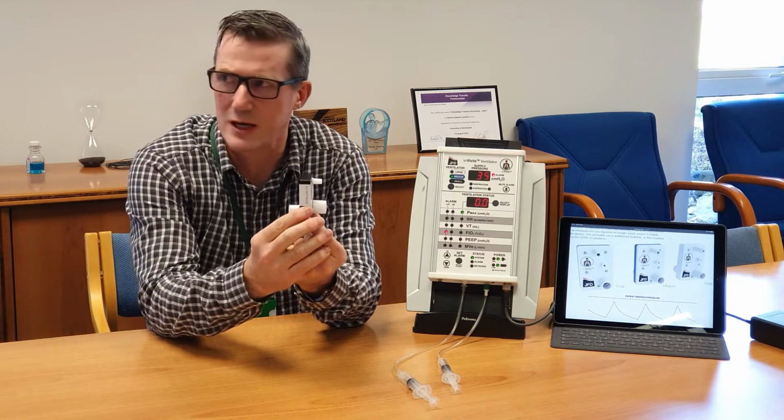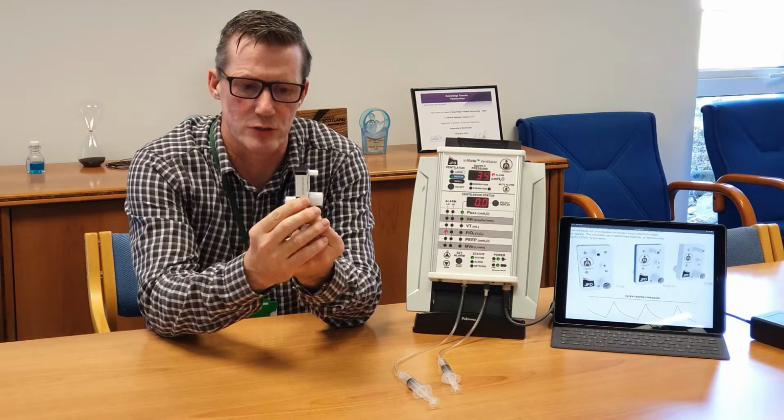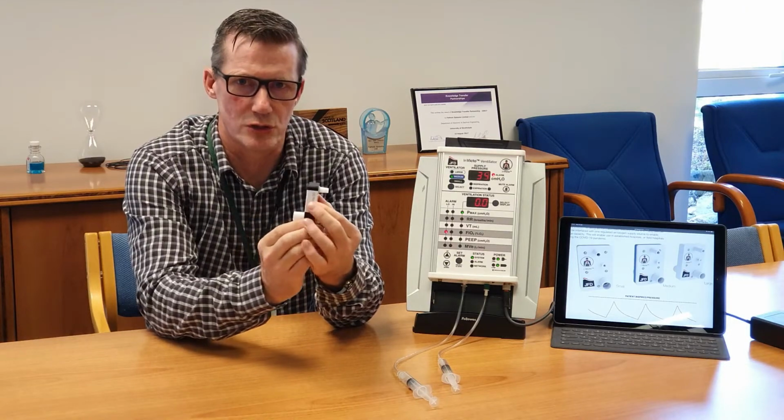So this device here, very small, sits in line between the gas panel and the patient, who, like I said, wears an NIV mask. We inject the oxygen at the mask to give the increased FiO2, and we modulate the oxygen content.